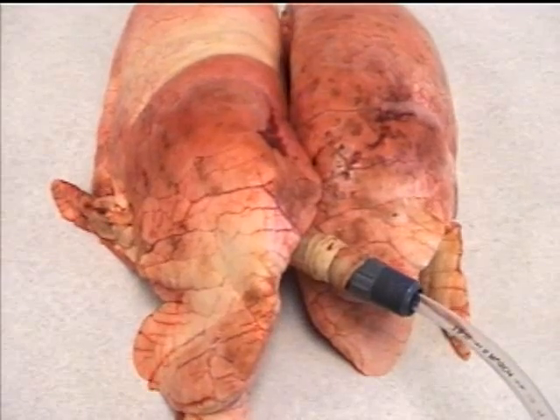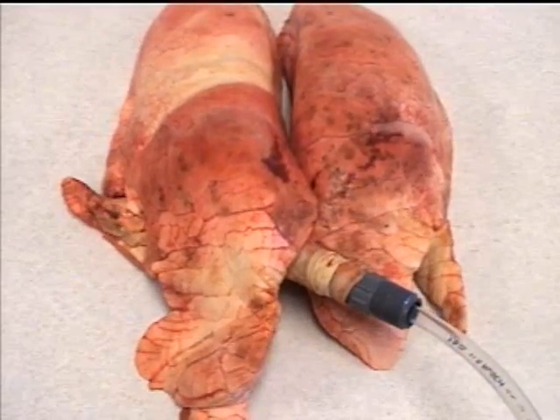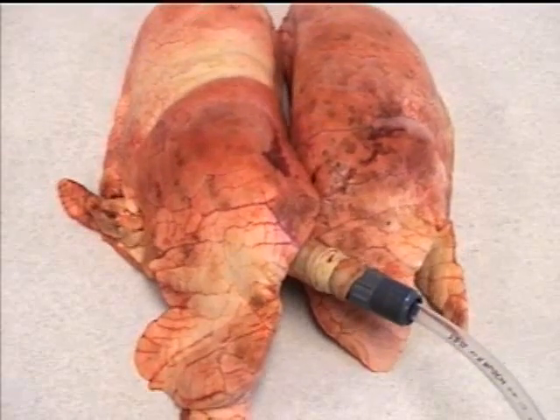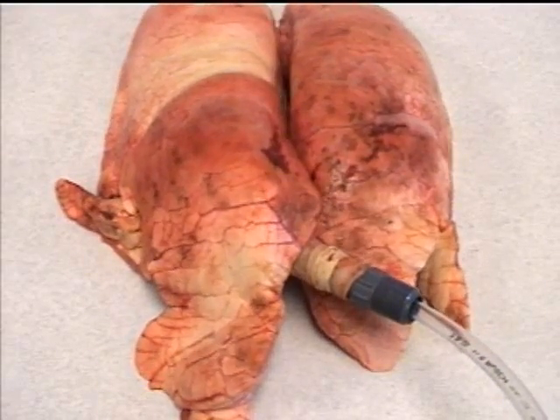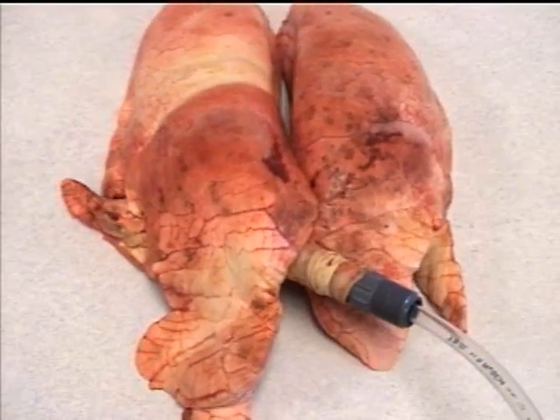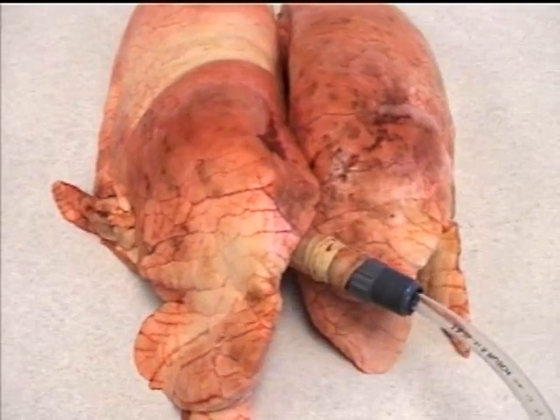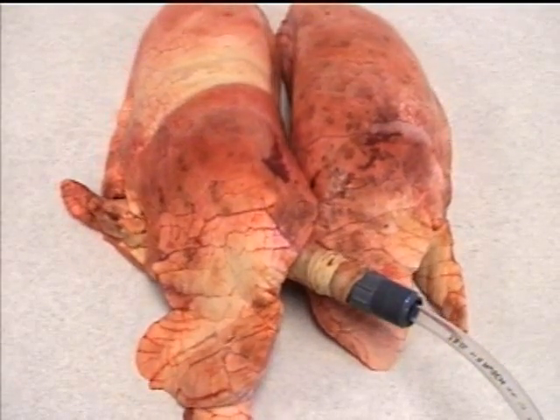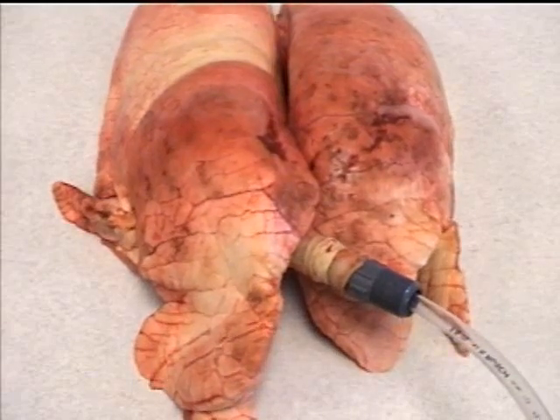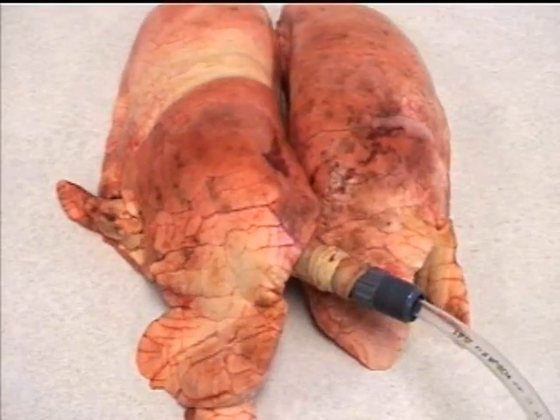And again we can take the oscillatory CPAP completely off, and you can see the lung derecruit down to just our demand CPAP. Take that off, and now we're just ventilating at pulsatile flow rate at approximately 15. You can see the atelectrauma that could occur with this type of lung model.